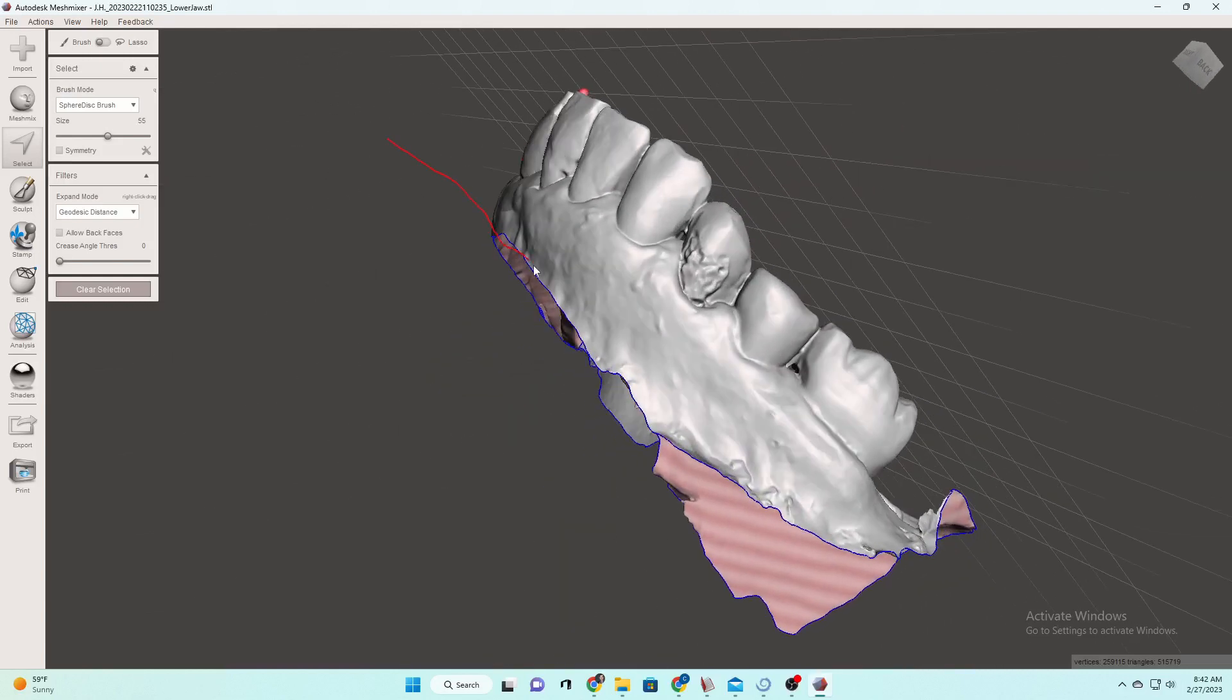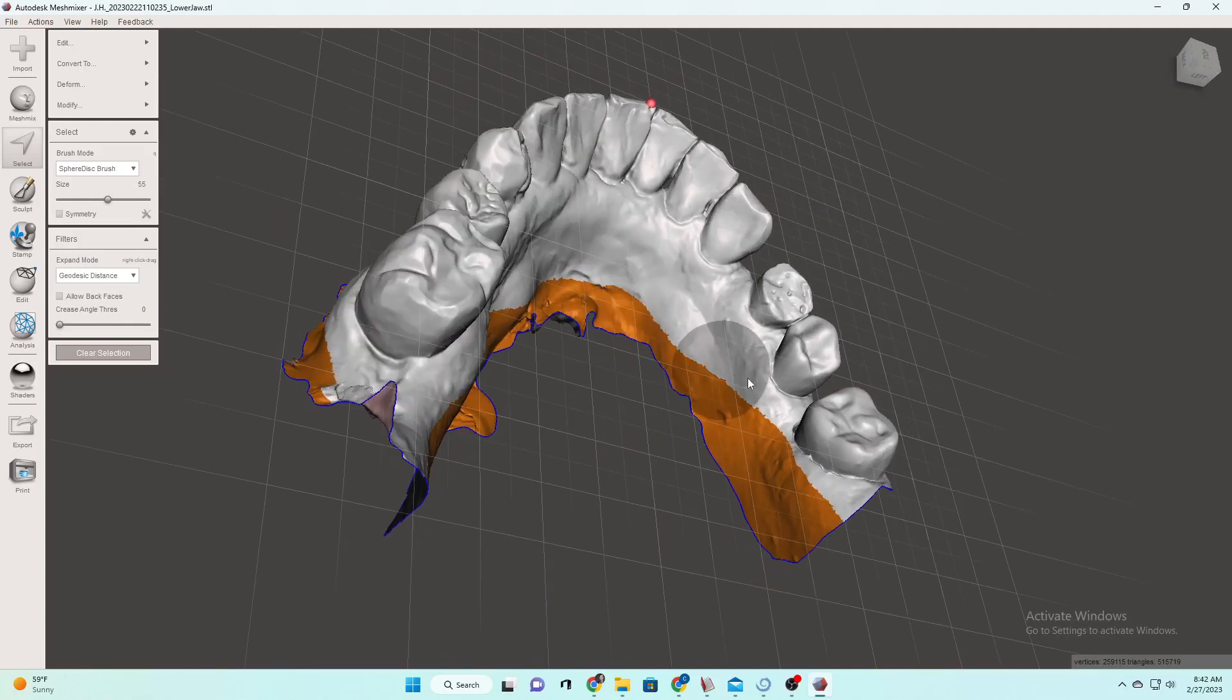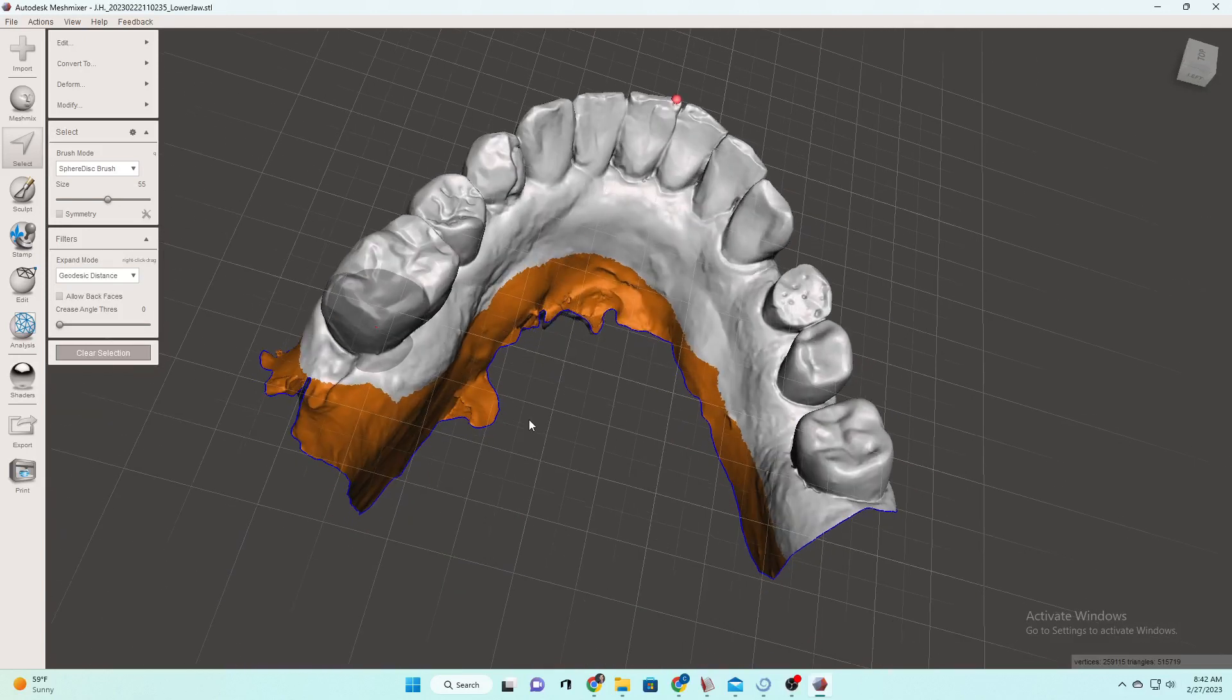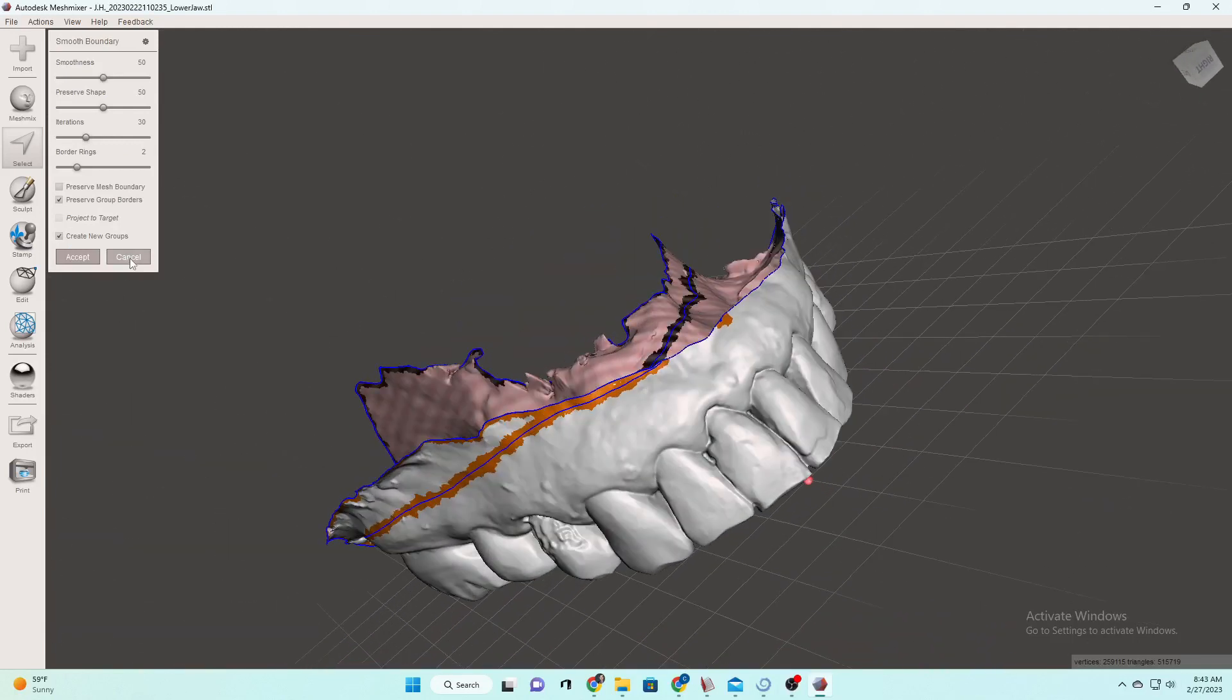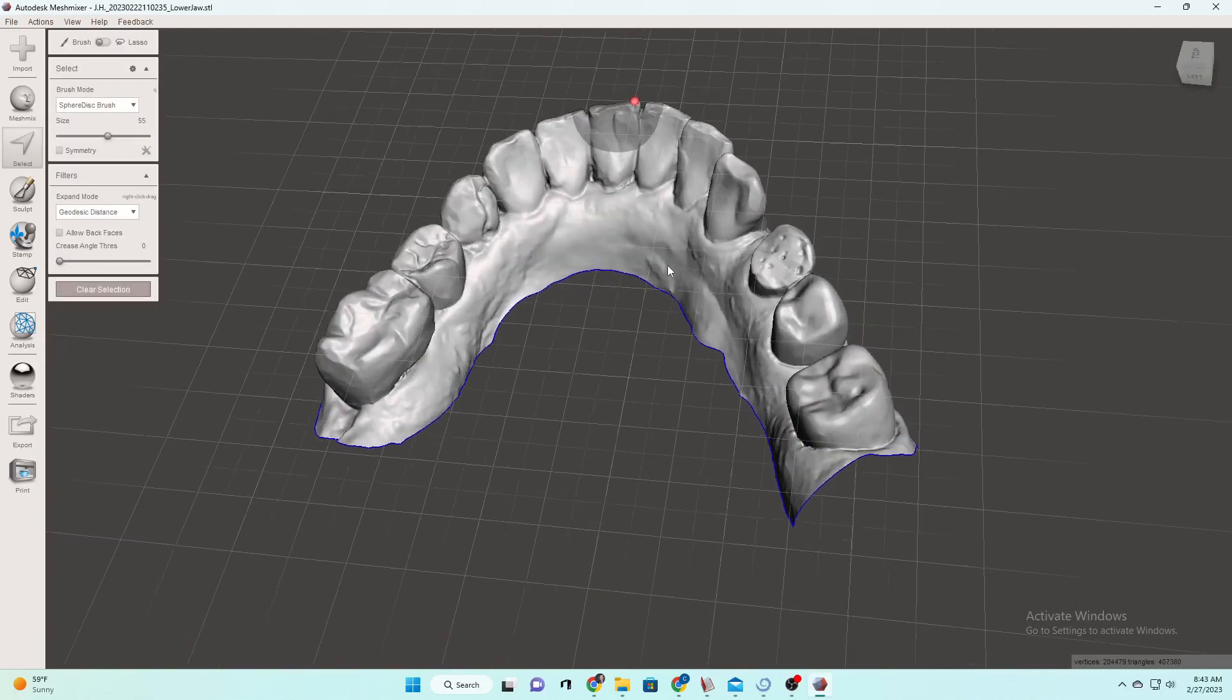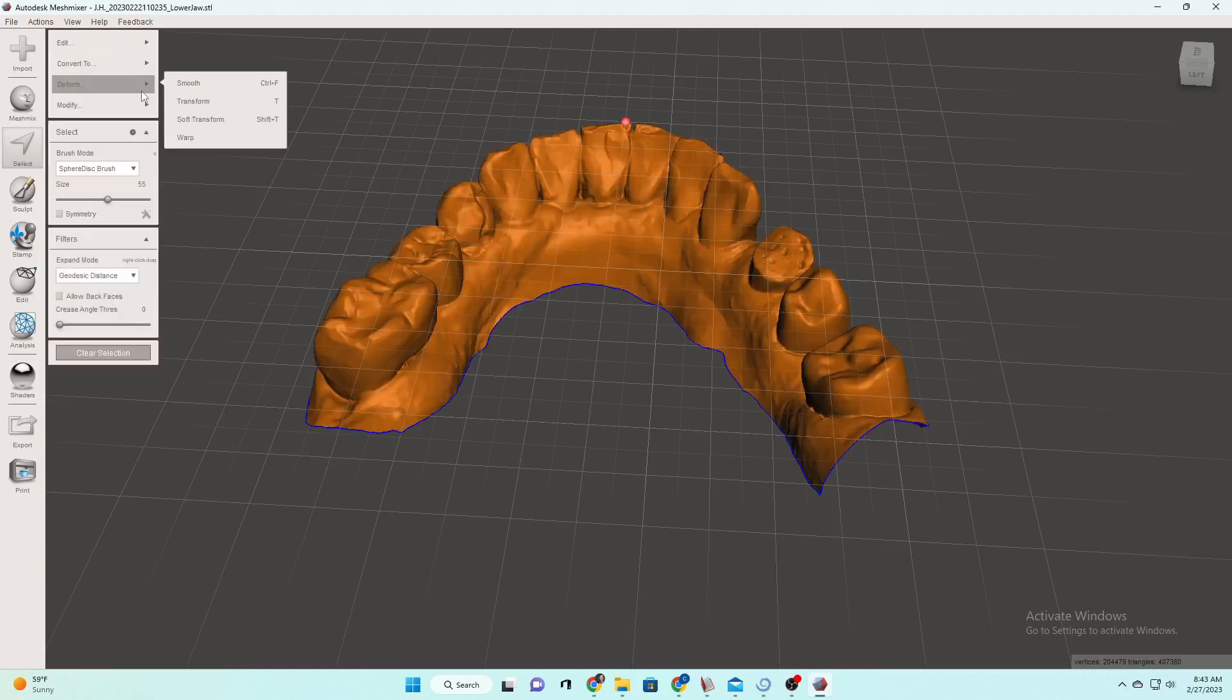And we don't need all of that. So we'll do kind of the same thing on this side. You'll see me changing the angulation a lot depending on where exactly I want to cut off. So a little too much over there. So we'll just take that off. All that information, we really don't need to print just a waste of resin. So just highlight where you want to delete. B for border. Doesn't like that one little guy right there. So we'll go ahead and delete that off of there.